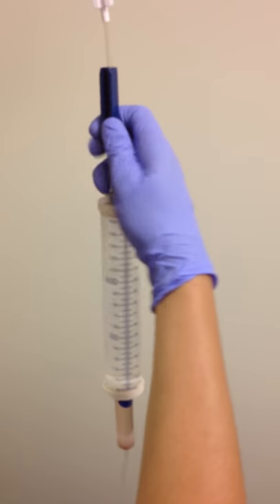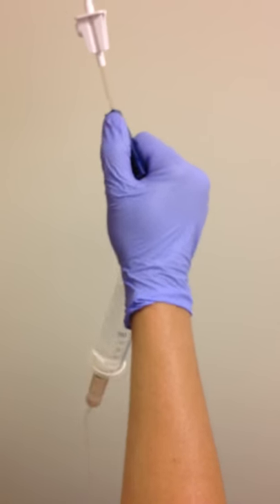Once we get 100 milliliters, we'll turn off the thumb wheel between the D5W and the metered dose chamber.